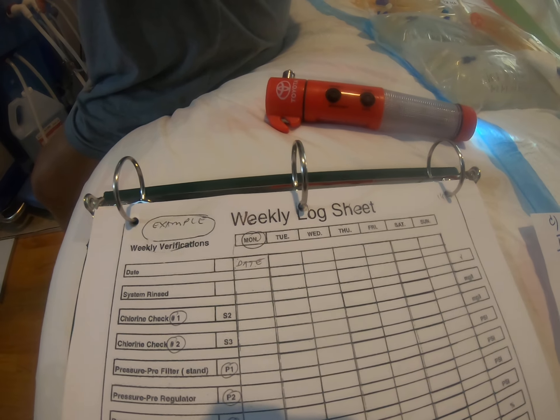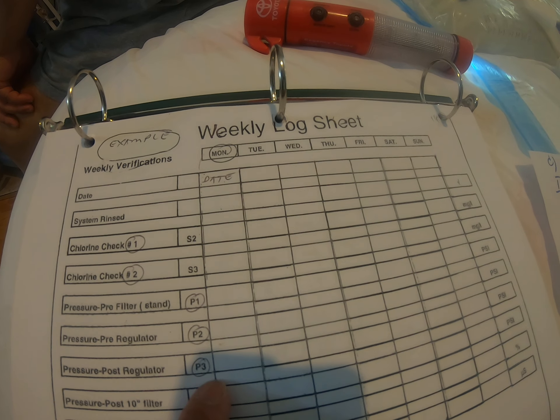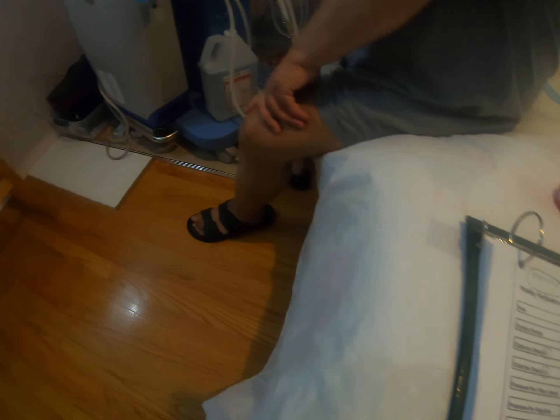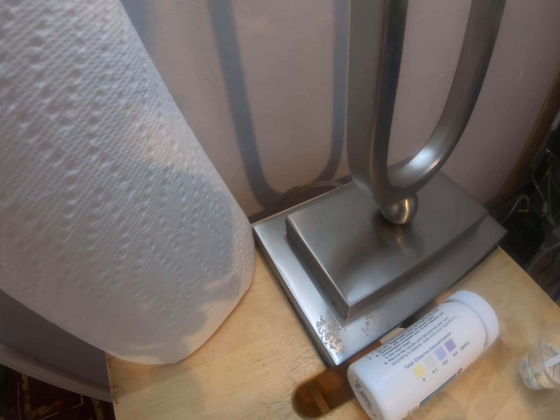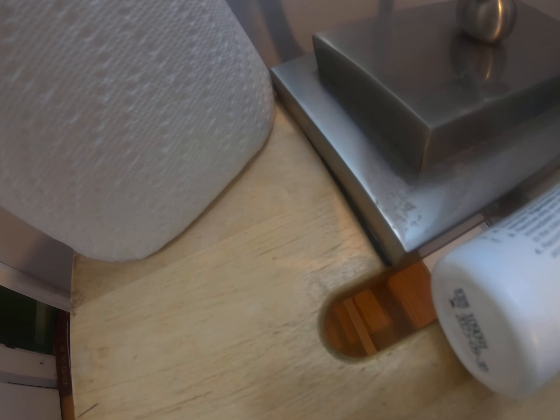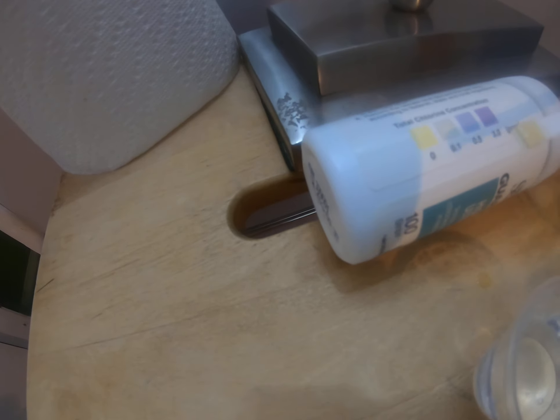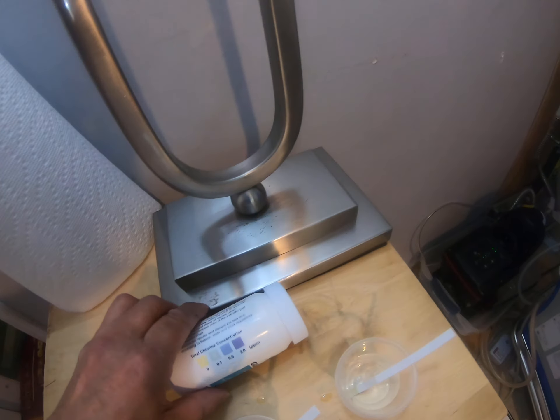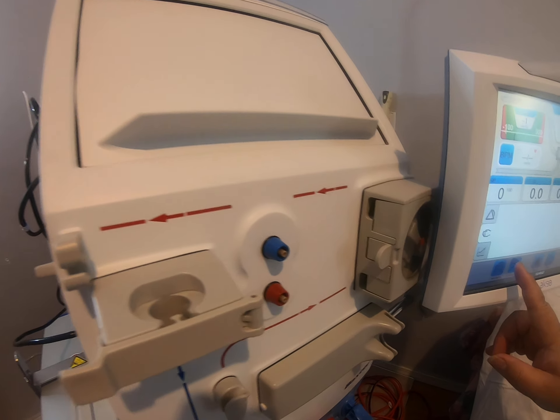We did the rinse and the chlorine checking. We did the pressure reading: 63, 62, and 30-plus for the lower two — write those down. Now we check the chlorine test and compare with the chart. The first one is yellow, the second one is yellow — that means it's good. The chlorine check is good. We're done with the chlorine check.